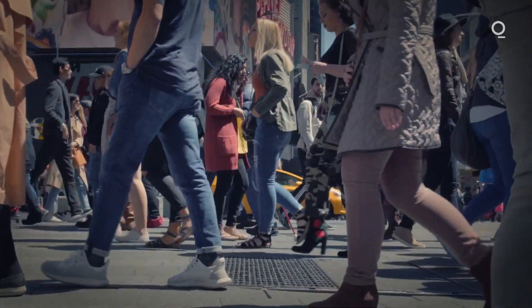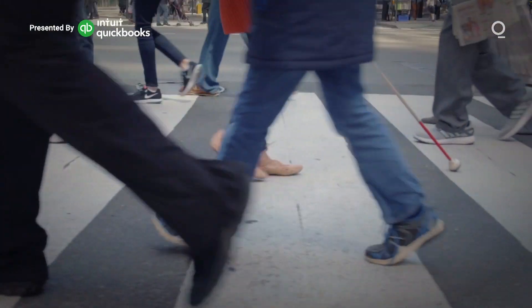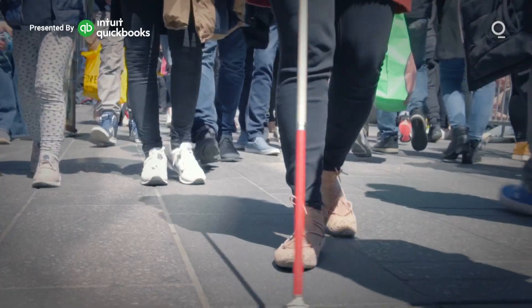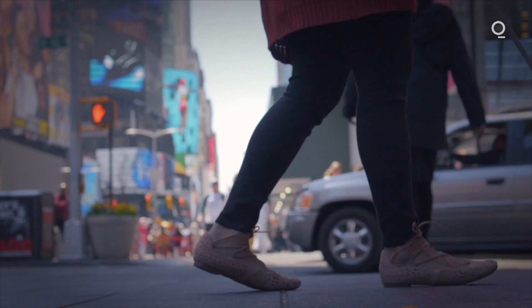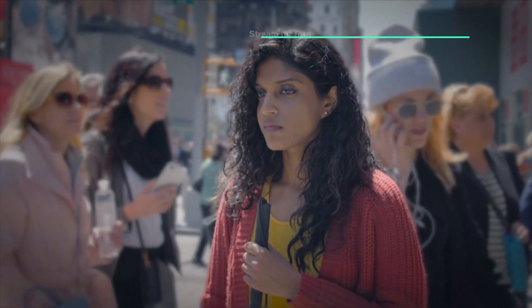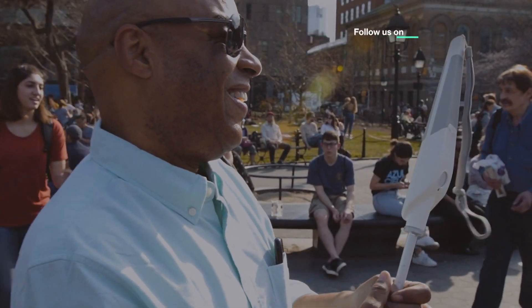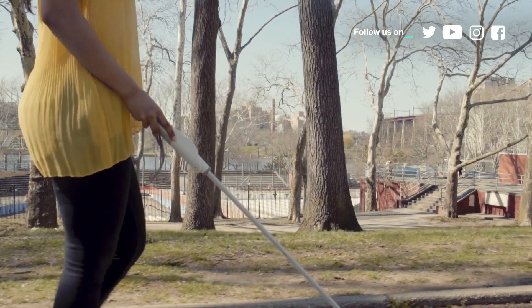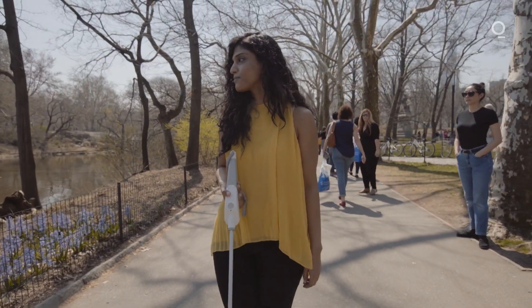It's a bigger picture. That problem has become so exacerbated here in COVID — you can't just go out there and know that there's going to be someone that's going to help you. With WeWalk, we realized now more than ever we need to give our visually impaired community a tool that gives independence, a tool that reassures us that we can leave the house. It only takes one bad journey, one bad experience, one close call for someone that's visually impaired to just not want to travel anymore. That reassurance, that confidence — being able to say, if you wake up in the morning with your WeWalk, you'll get your info about the weather, about the bus stop, and you'll get to where you need to go safely, effectively, and independently.